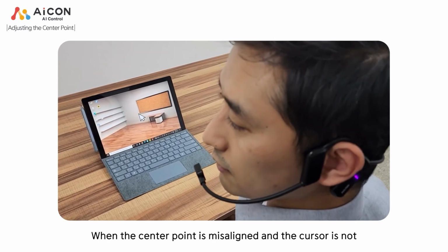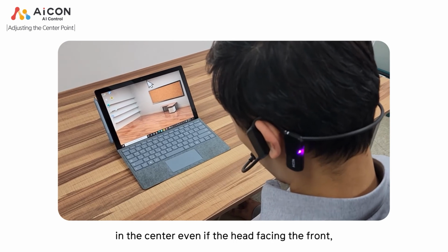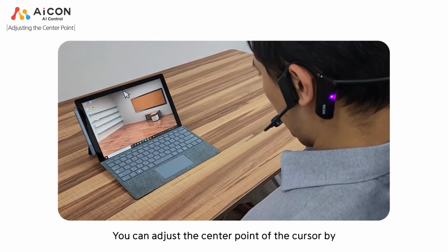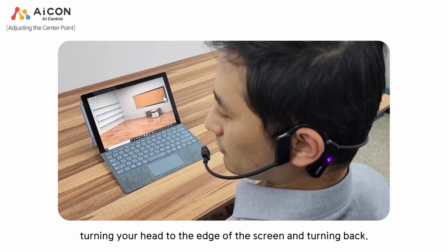When the center point is misaligned and the cursor is not in the center, even if the head is facing the front, or the top and bottom heights do not match, you can adjust the center point of the cursor by turning your head to the edge of the screen and turning back.